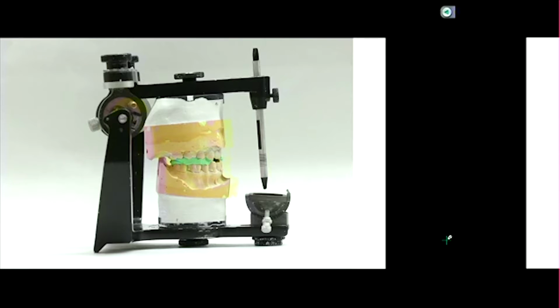What we'll learn in maybe your RPD or denture class is if, let's say, they're missing a lot of teeth, you can make a little wax plate, basically, and then put that in the mouth. So where there's wax, I just think of the pink wax as their teeth. So you have some sort of substitute to help you make these records. Okay? So it's not necessarily that the incisors need to be edge to edge, but you need them in some protrusive position.